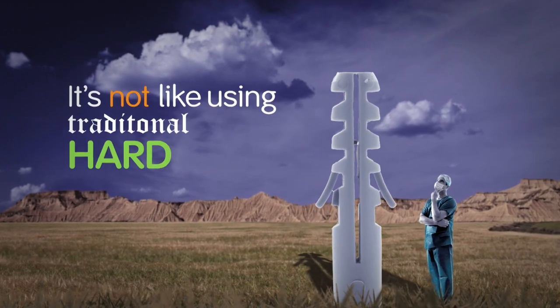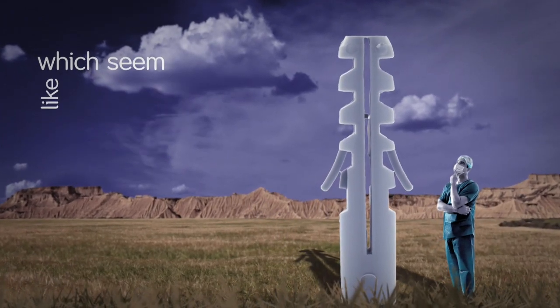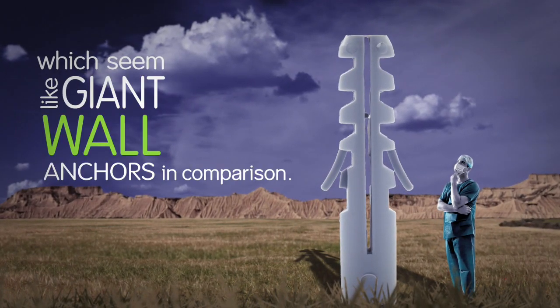It's not like using traditional hard anchors, which seem like giant wall anchors in comparison.